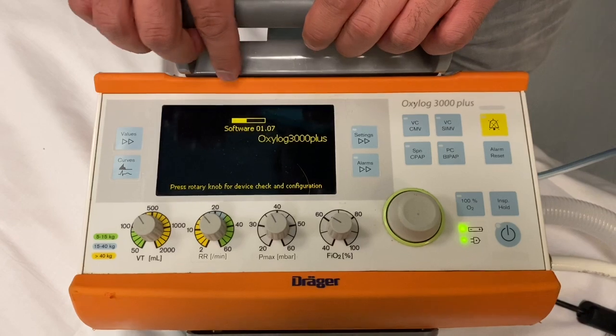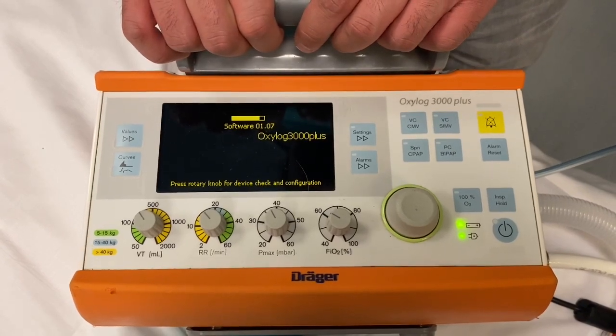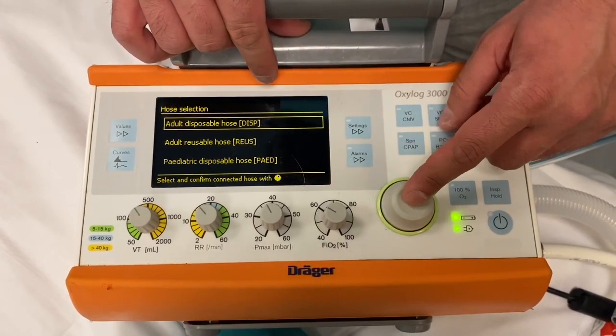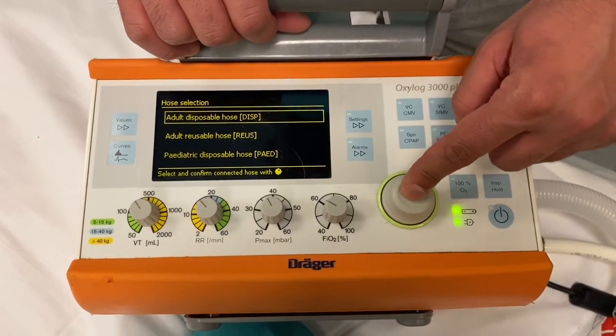Let the Oxylog run its check, and select by clicking down on the knob: adult disposable hose.